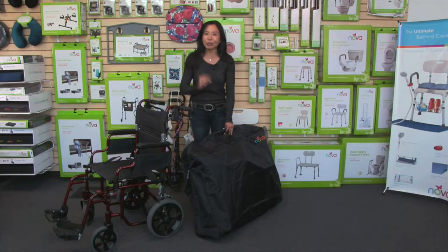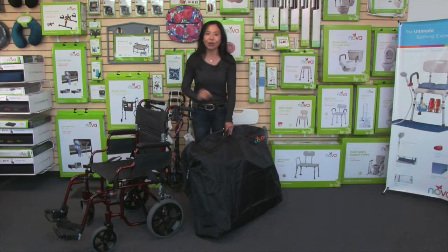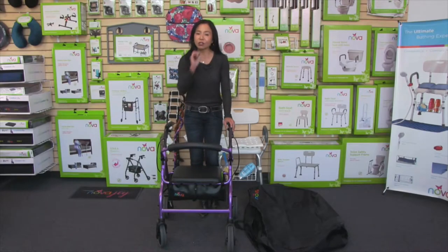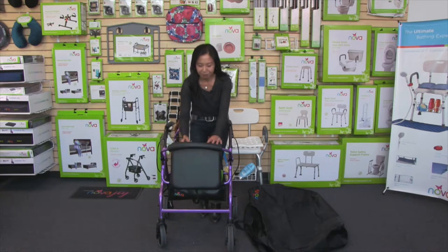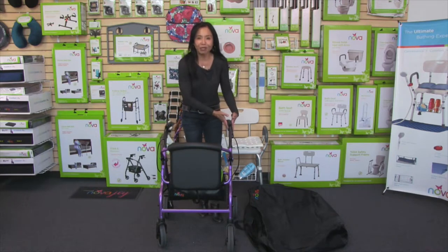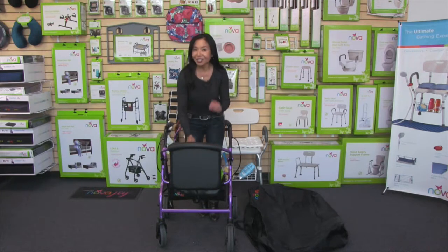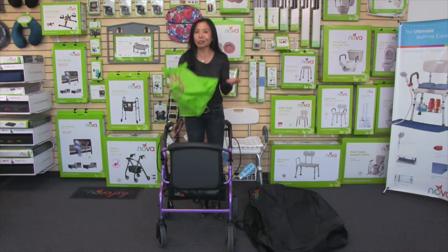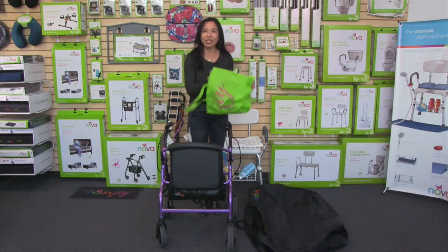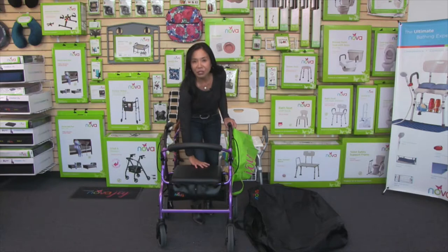Now I'm going to show you some helpful tips on how to best use this bag with your rolling walker and transport chair. You're going to need to remove the handles, so make sure you put those height-adjustment knobs in a safe place. You're also going to want to protect the handbrakes — this is the part that most commonly gets damaged in travel. I suggest getting a reusable grocery bag, nice and roomy, and using that to protect the handbrakes.